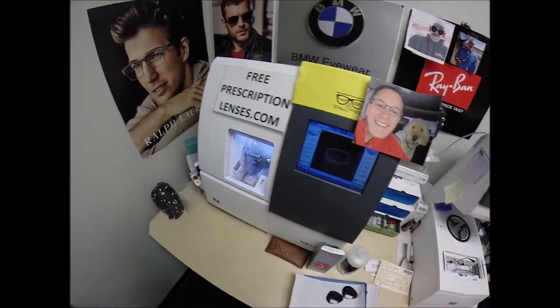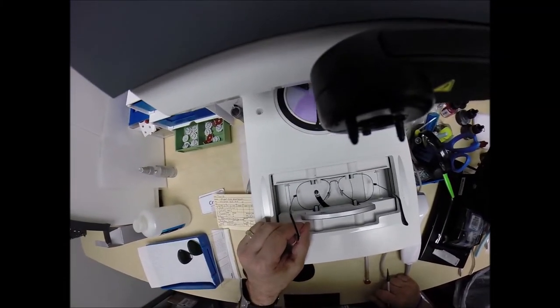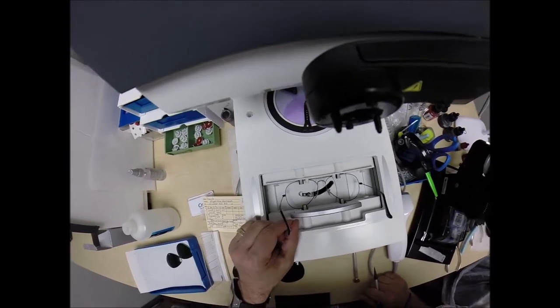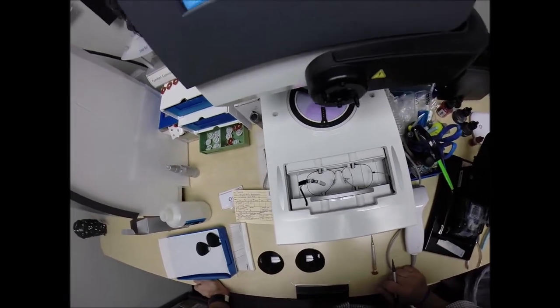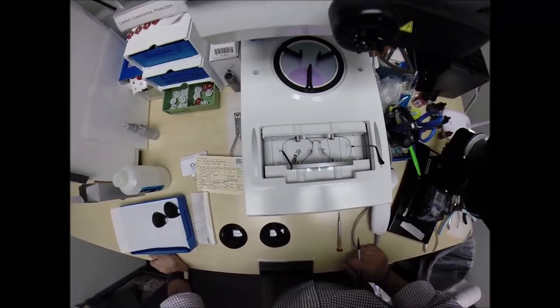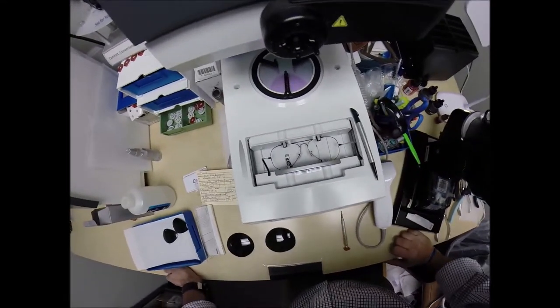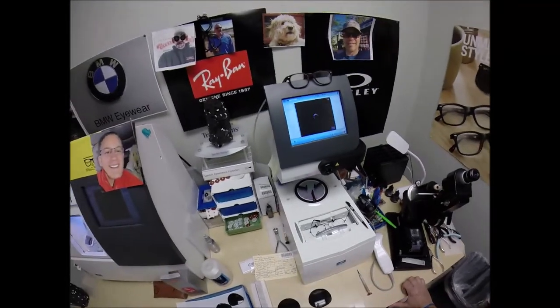Here at freeprescriptionlenses.com where everyone loves a bargain and no one is disappointed in quality. You buy a genuine, authentic Ray-Ban frame, and you'll receive one free pair of clear, single-vision prescription lenses or non-prescription fashion lenses. My receipt has my federal ID tax number, so if you have vision insurance or flex dollars, you will get reimbursed for this purchase, whether they are prescription or not.